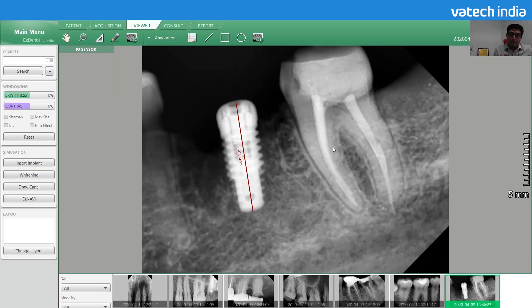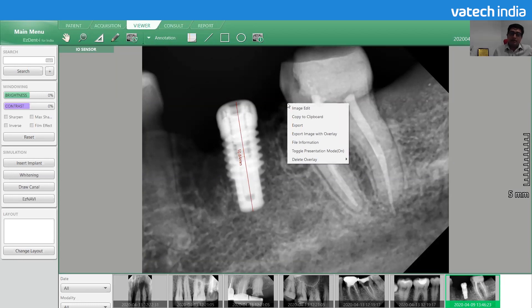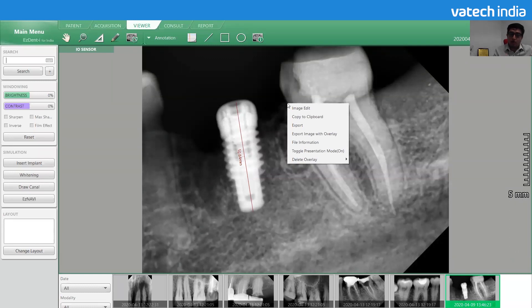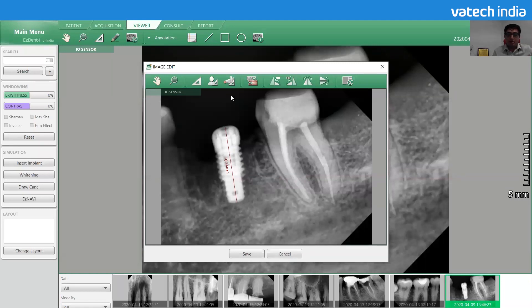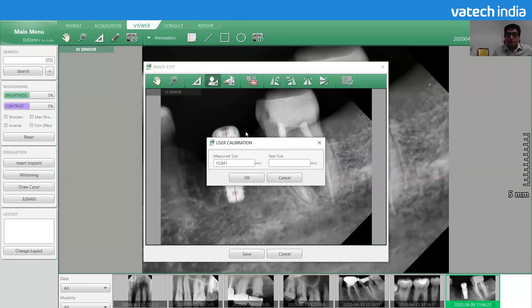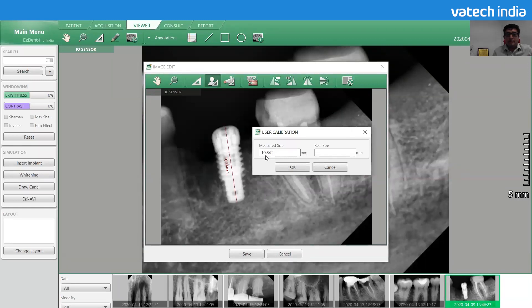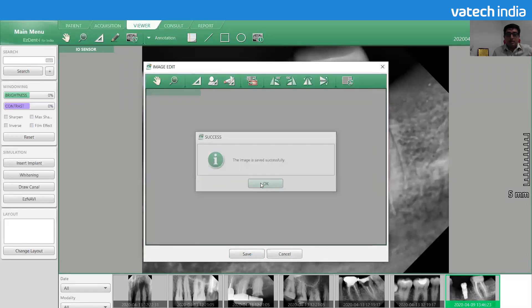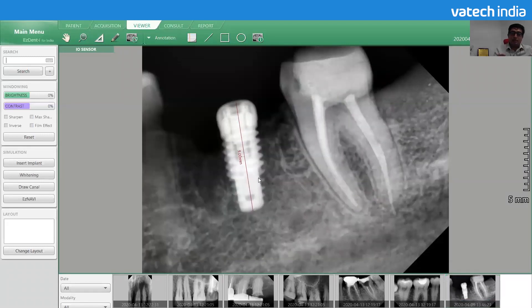The software has an option to calibrate that measurement. Right-click on the X-ray image to access image edit. Go to image edit, and you will see the option for user calibration. Select user calibration — it shows the measured implant length as 10.8mm. Since we know the actual length was 9mm, we select 9mm, click OK, and save the image. The image has now been calibrated as per the actual length of the implant.